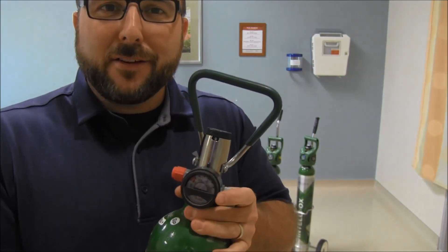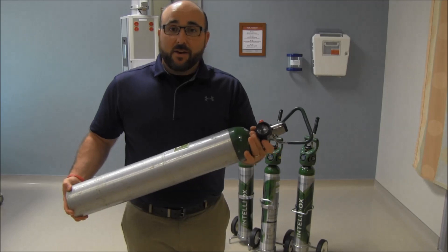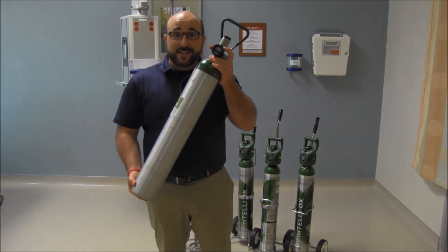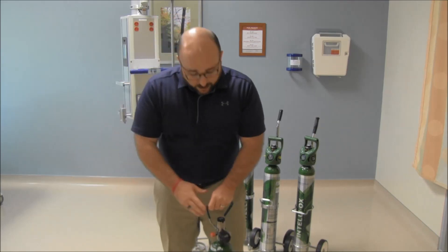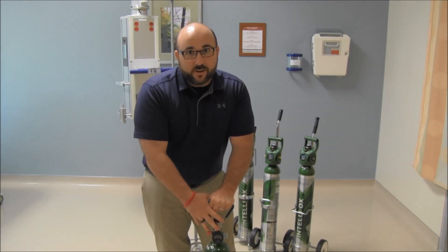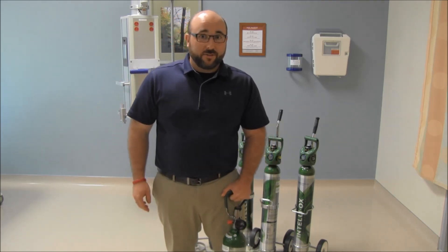How does that convert to knowing how long this tank will last for my patient — to get to CT, cath lab, or up from the ER? Well, there is a conversion for this size tank. This is an e-cylinder, and the conversion factor is 0.28. You take your PSI times 0.28, then divide by your liter flow. Not everybody can do that every time you put an oxygen device on.